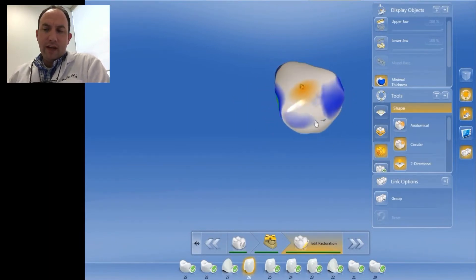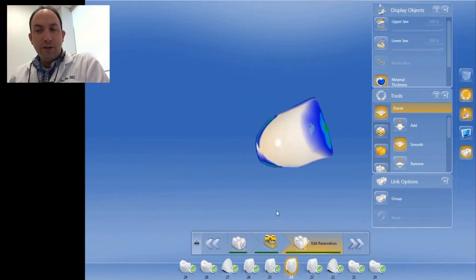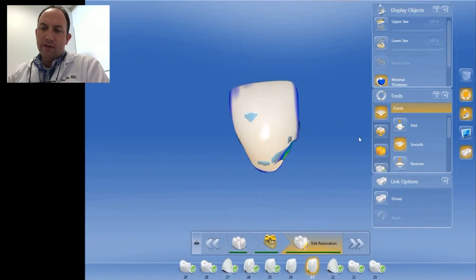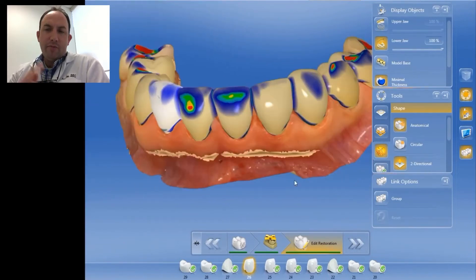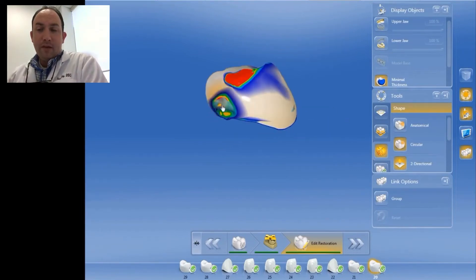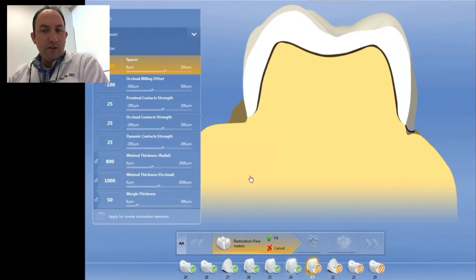The cement spacer and minimal thickness settings are all materials dependent. You want to make sure you take into account the position in the mouth — we don't necessarily need two millimeters of porcelain coverage on an anterior tooth. This case turned out really nice in the end. One thing I noticed is the computer proposed the design a little bit to the lingual, which created some thin spots for us to deal with — minimal thickness violations or warnings that we had to take care of. You can see here I'm going through and altering the spacer on each of these crowns.